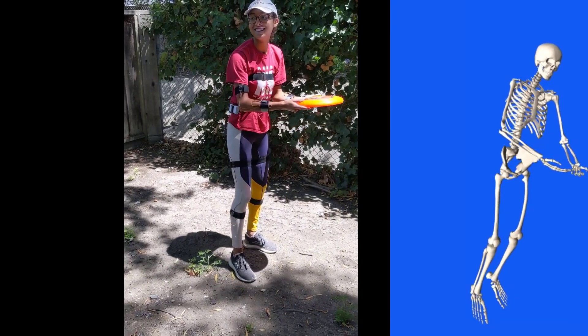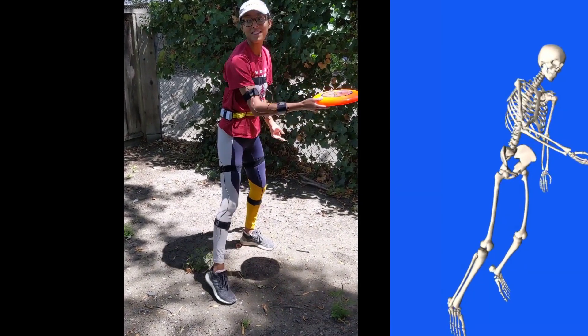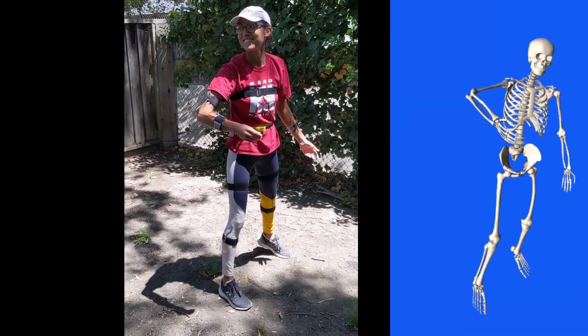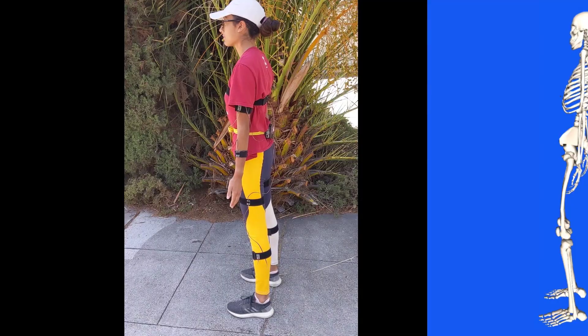In this video we present a system for computing joint kinematics in real time and demonstrate how to build your own copy.